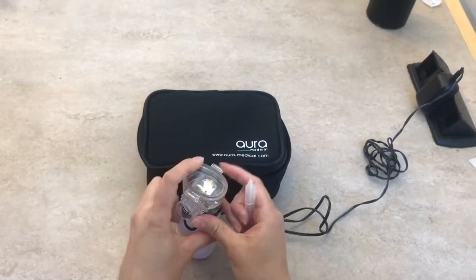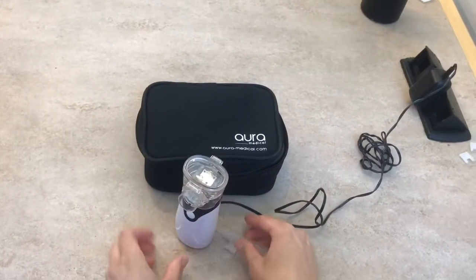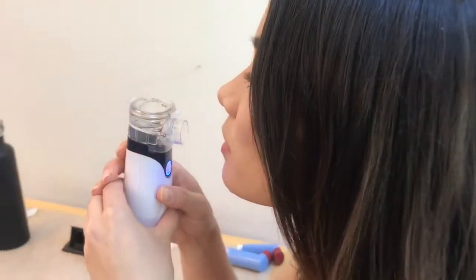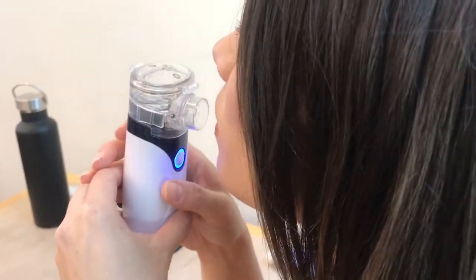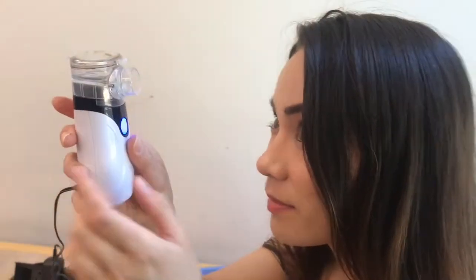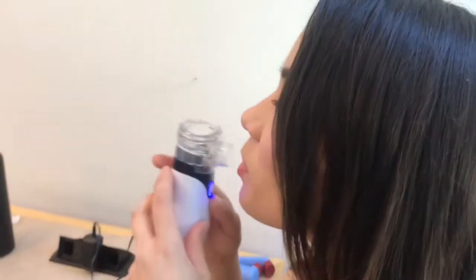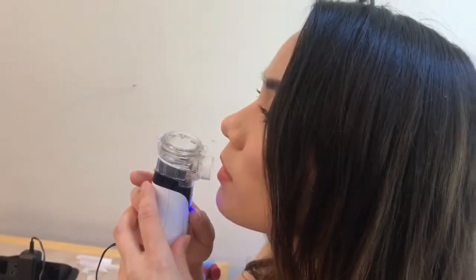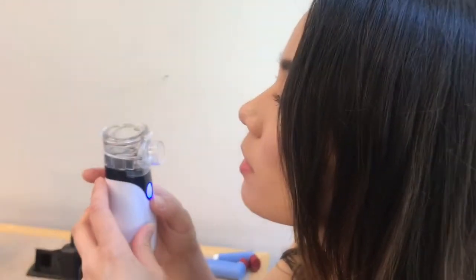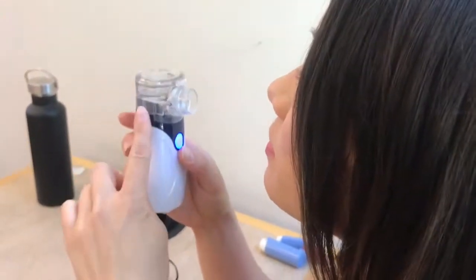Close it — there's a little latch that closes right there. The little blue circle lights up and then you just inhale. Sometimes it comes with an attachment piece, but it's much easier to use it this way. This thing also turns yellow-orange if it needs more battery, but mine doesn't need any since it's plugged in. Easy like that — there you go.